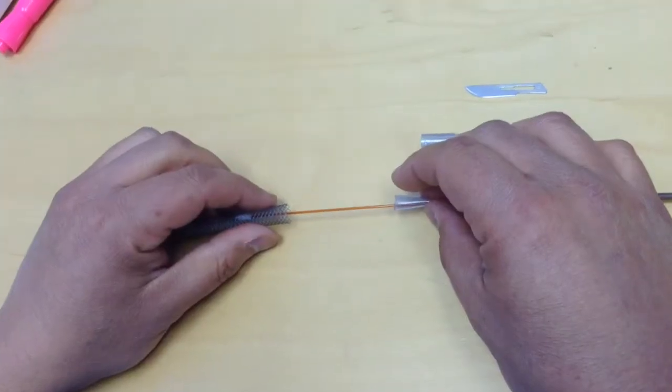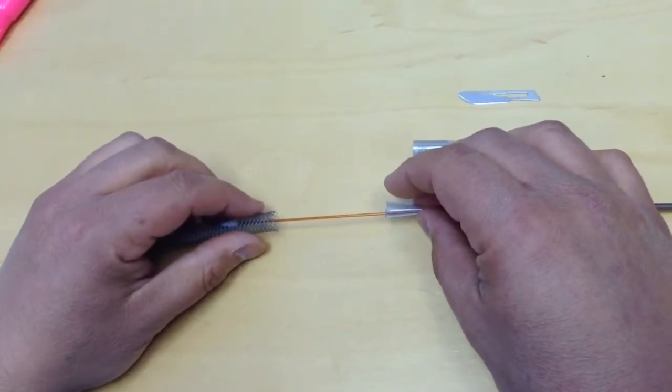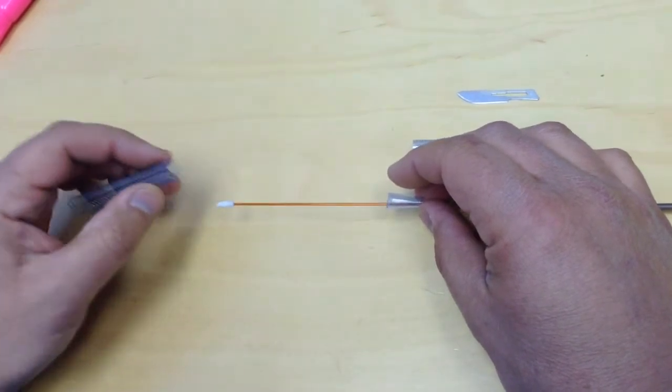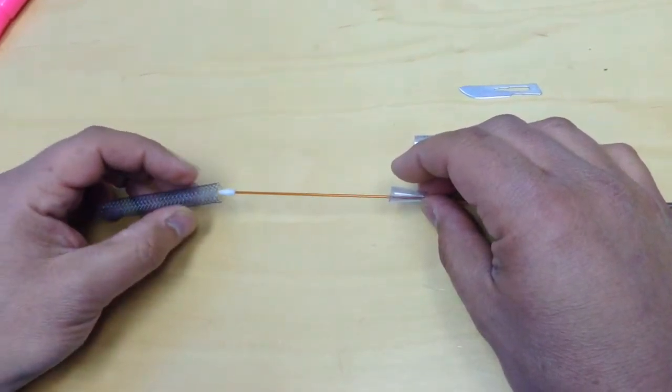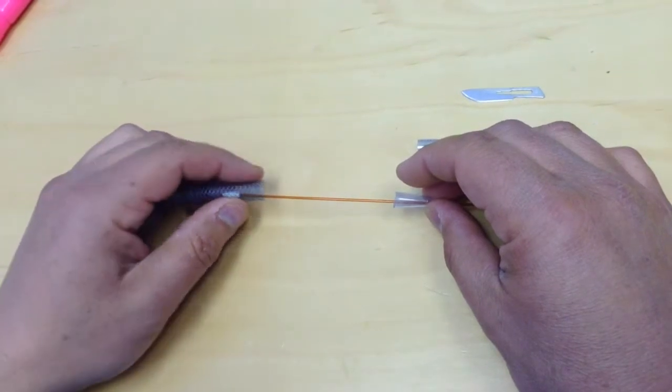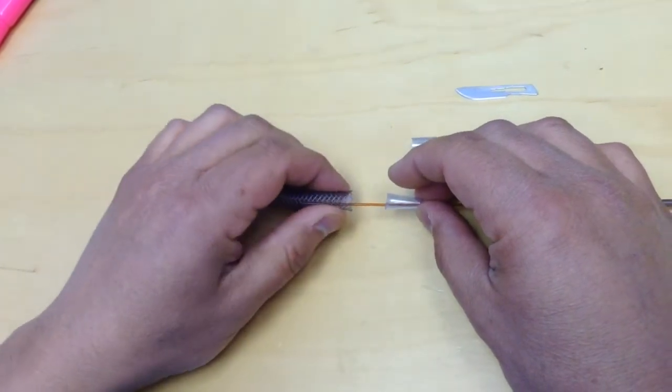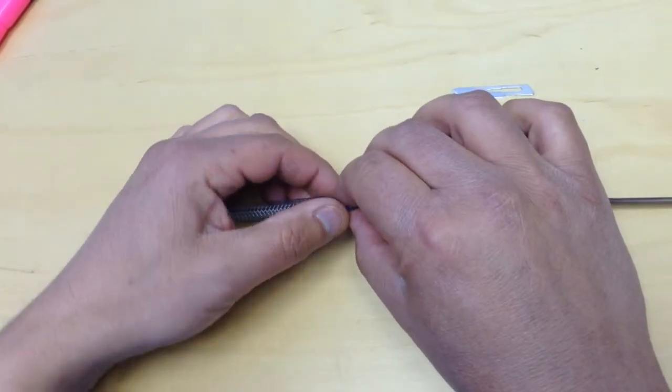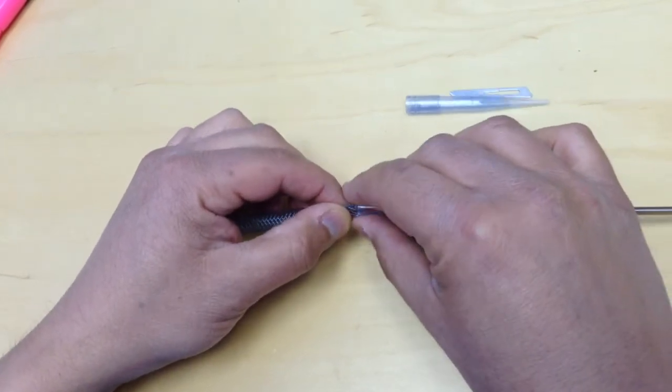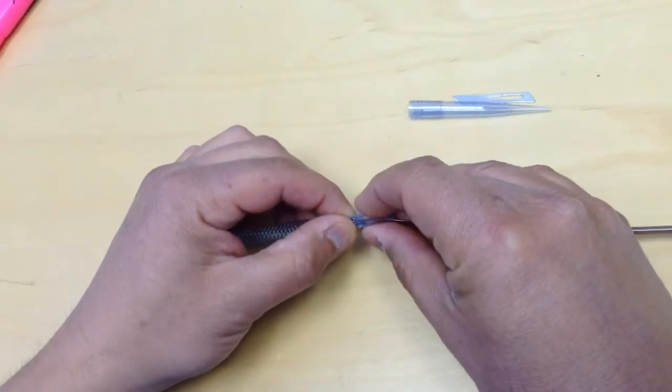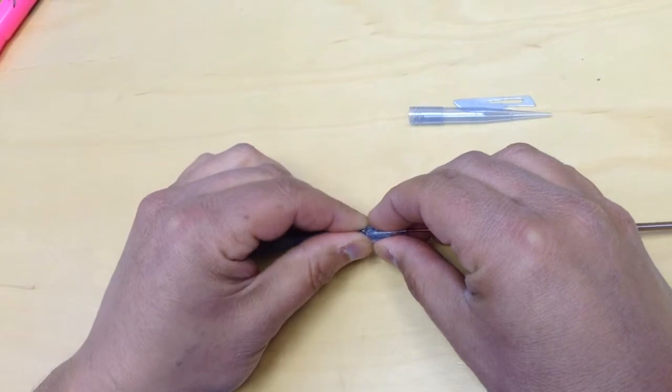Can you see? Okay, start it. So you feed the stent opened through the tip of the delivery sheath catheter and then compress with your hands. And feed inside that cut tip.